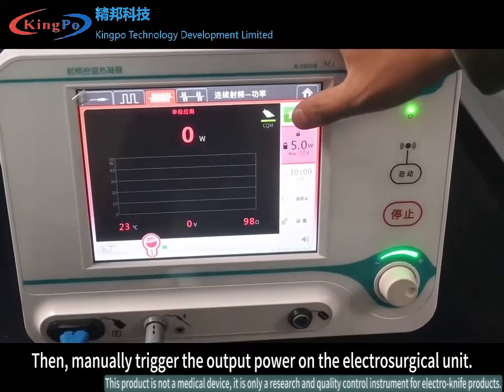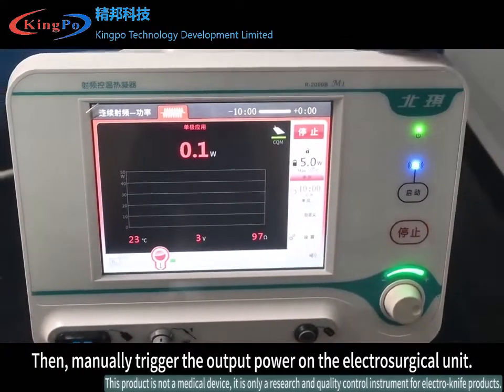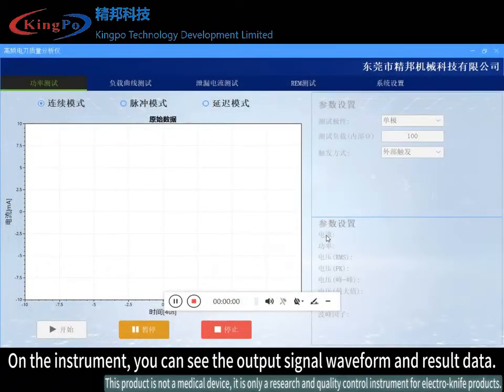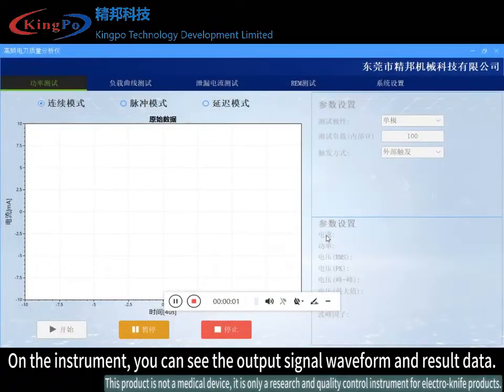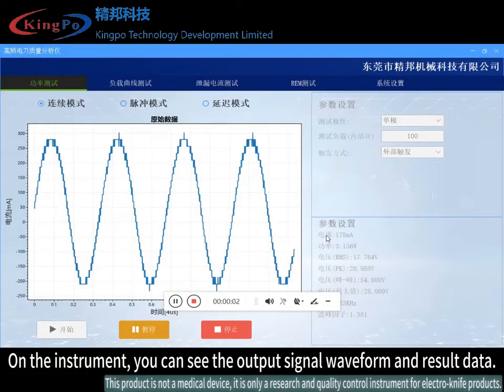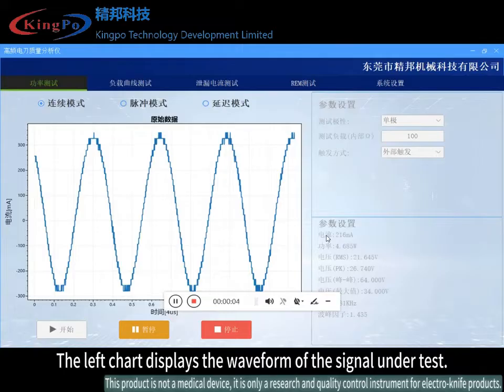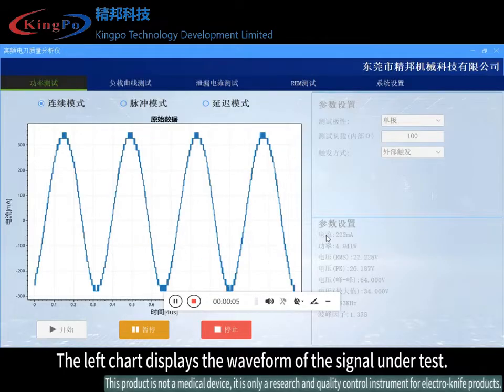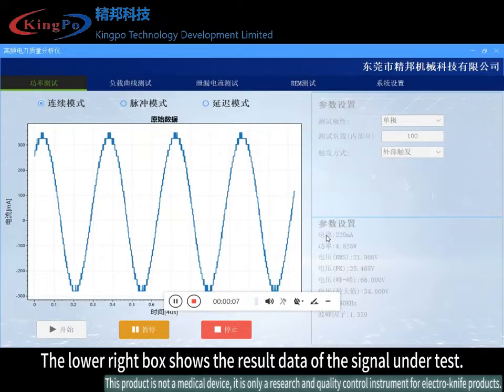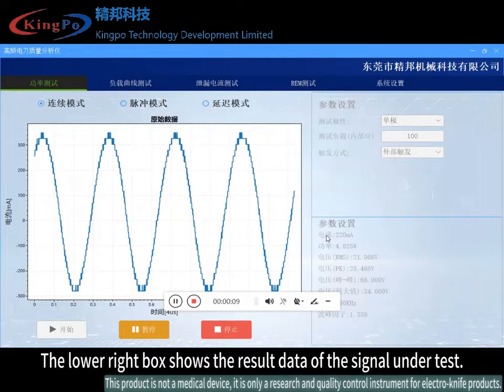Click start test and the instrument will monitor the signal under test in real time. Then manually trigger the output power on the electrosurgical unit. On the instrument, you can see the output signal waveform and result data. The left chart displays the waveform of the signal under test, and the lower right box shows the result data of the signal under test.